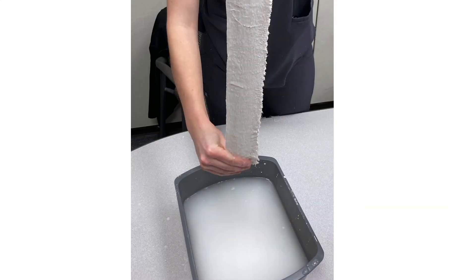The trick is to get the excess water out and smooth the plaster over the bucket to keep it from making a mess. My issue with plaster is that it's messy — the white chalky liquid that drips is really annoying. More importantly, the residual water and calcium should not be poured down a regular drain, as it can harden the pipes and cause significant plumbing issues. Be sure to dispose of the excess liquid properly according to your local guidelines.